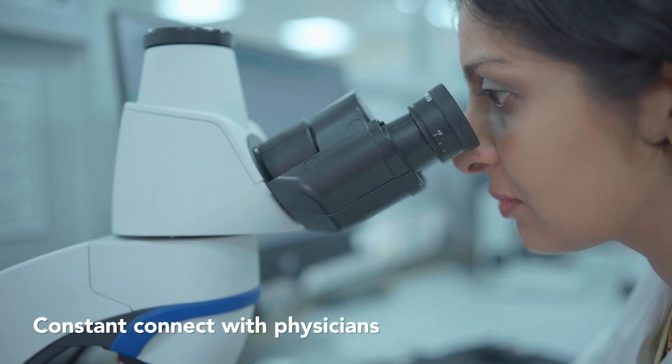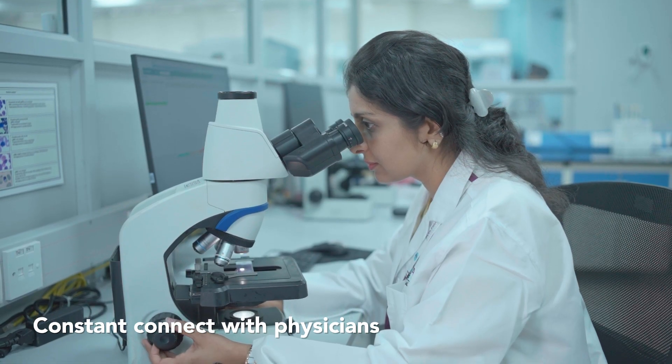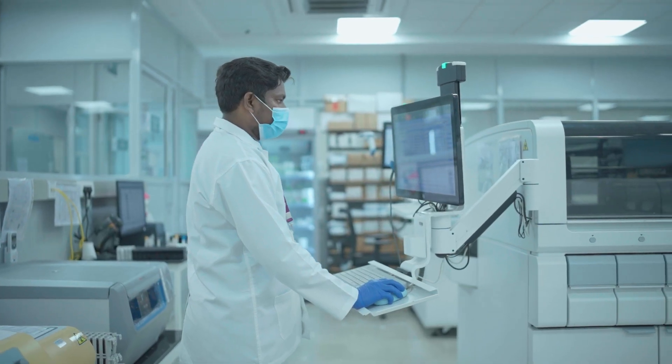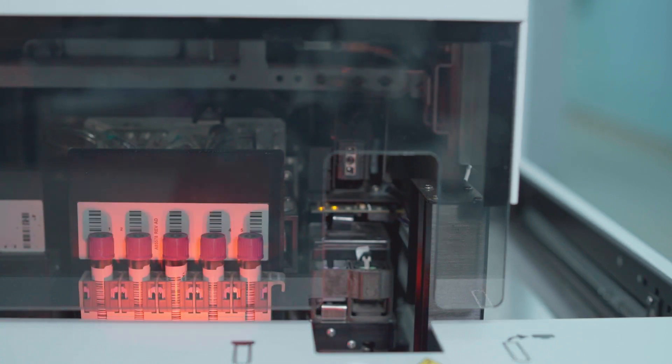Our pathologists are in constant communication with treating physicians to inform critical values, as well as to advise any pertinent reflex testing on the same sample, saving precious time for clinical decision-making.